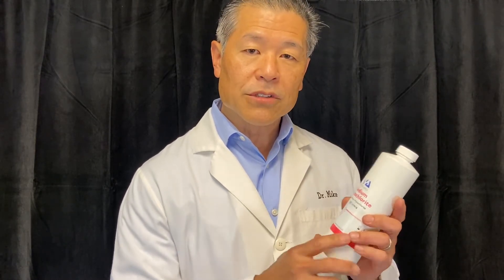To get around that, we use irrigants like this sodium hypochlorite from Vista Apex, which is designed and regulated so we know we're getting either a three percent or six percent solution. Is that an area we want to compromise on? Sodium hypochlorite is probably one of the most important parts of doing a root canal because it removes all that diseased pulp tissue from the canal — so no, we don't want to sacrifice with our sodium hypochlorite.